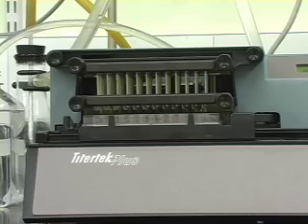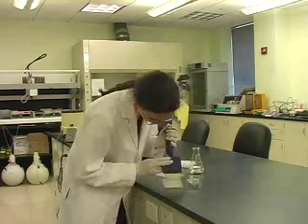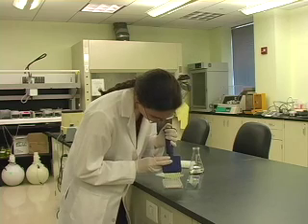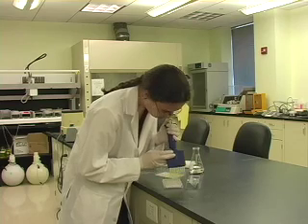Wash the plate to remove excess conjugate. Add substrate to the wells. The substrate will react with the enzyme to produce a colored end product that can be measured in a spectrophotometer. The amount of color produced is directly proportional to the amount of antigen present in the test sample.